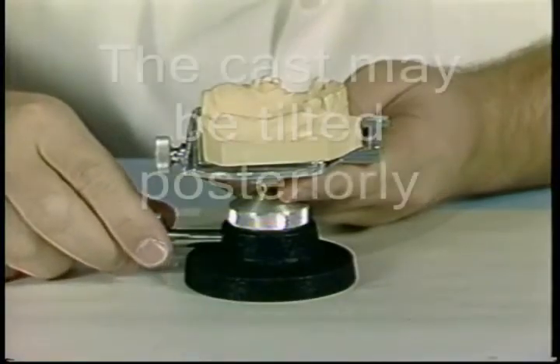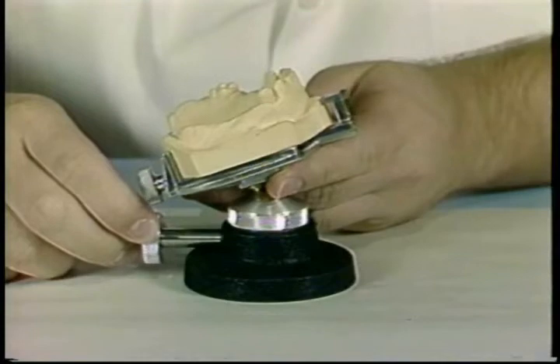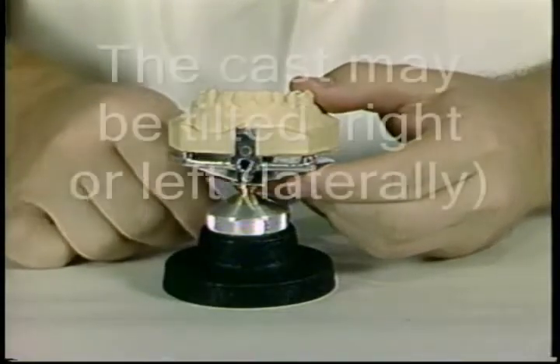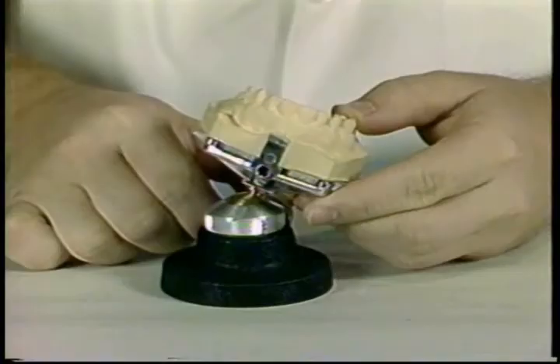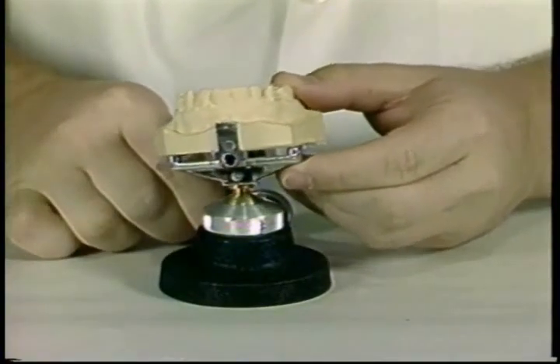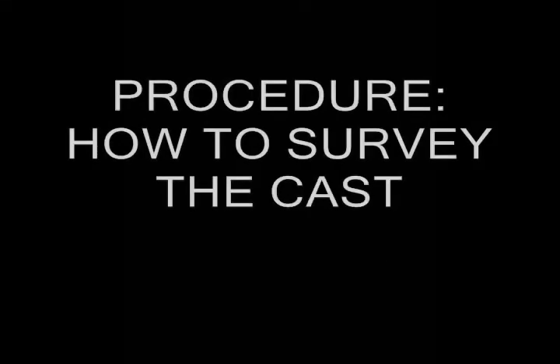The cast may be tilted posteriorly. These two movements are useful in locating the appropriate guiding planes. The cast may be tilted laterally, right or left. These two tilts are useful in relocating retentive undercuts.